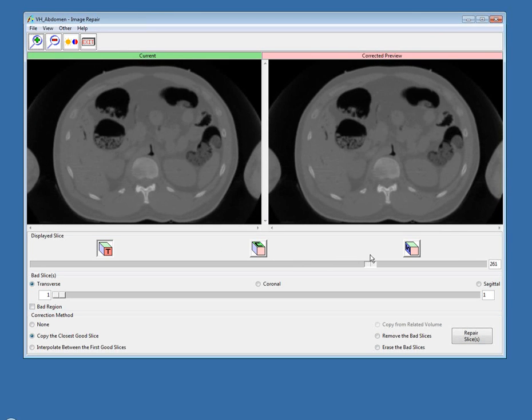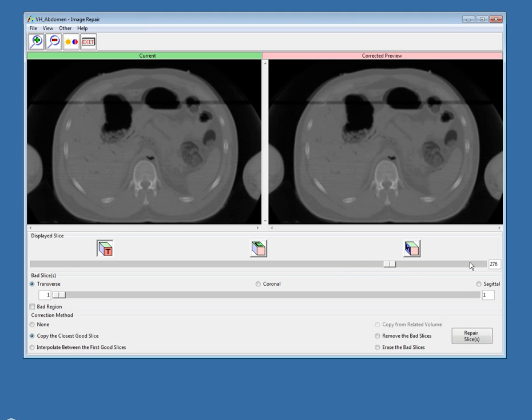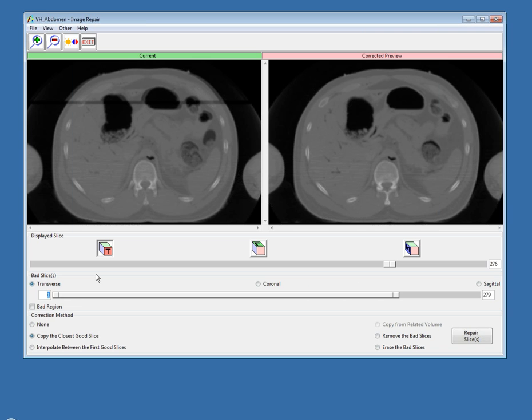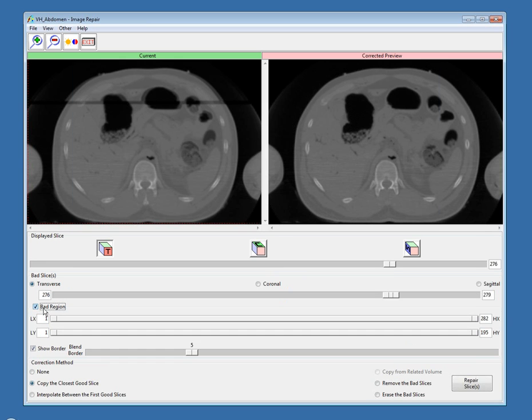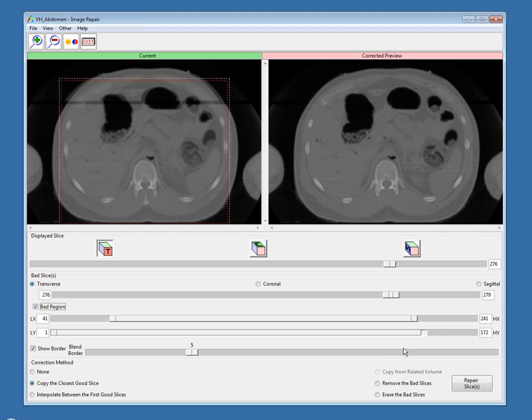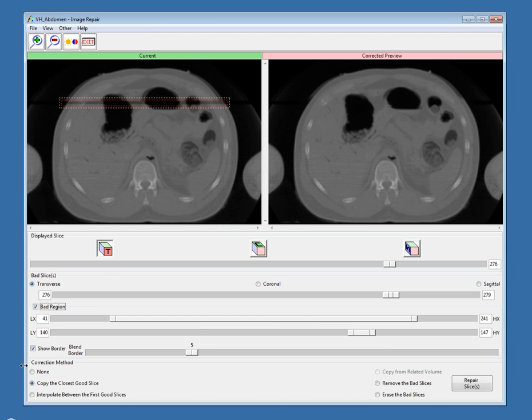I'll move to those slices quickly. You can see here we have a break. If I wanted to correct this, I would need to specify which slices are bad by typing that in. We have the option to correct these slices using adjacent slices, or we can try to correct just a sub-region of the slice by selecting the bad region checkbox. We can then set a sub-region around the corrupt area. This sub-region is corrected based on the correction method selected: either copy from the closest good slice, or interpolate between the first good slices on either side.